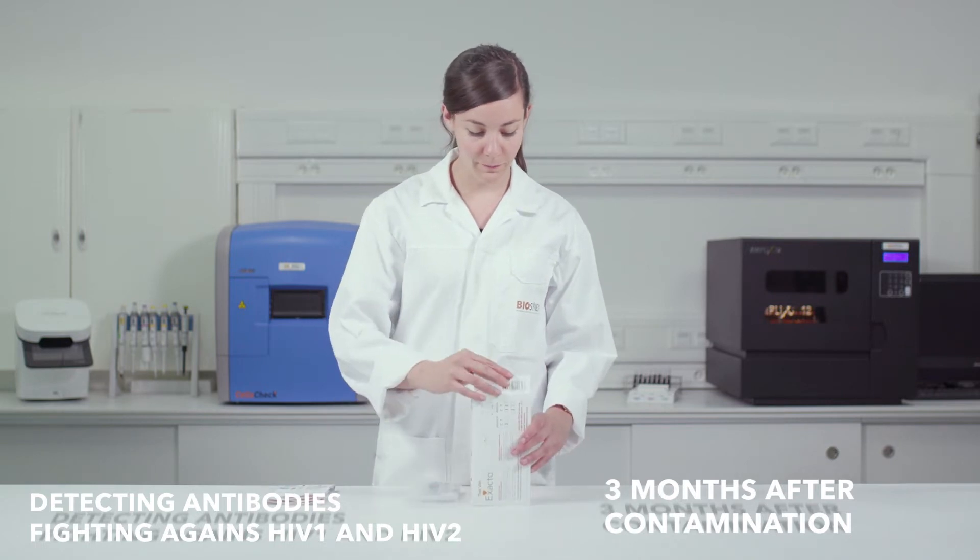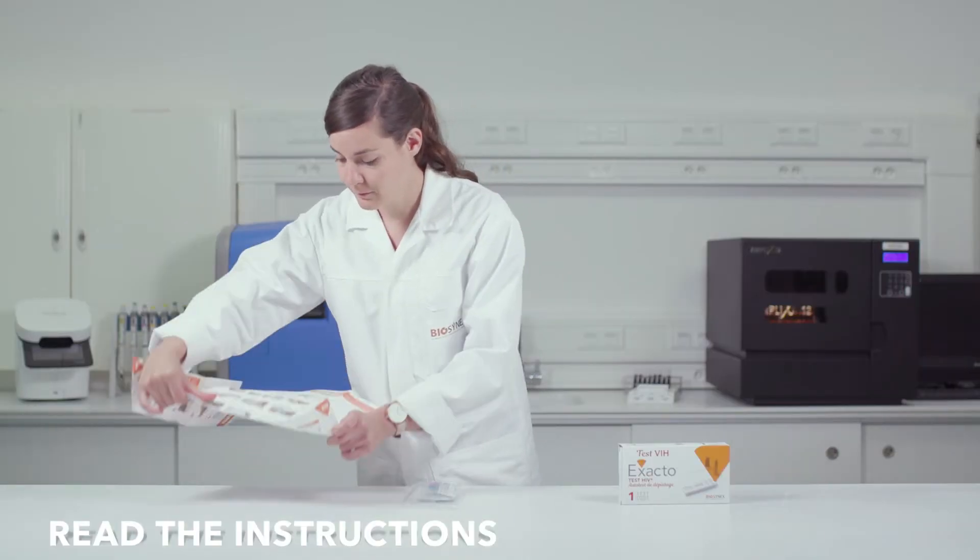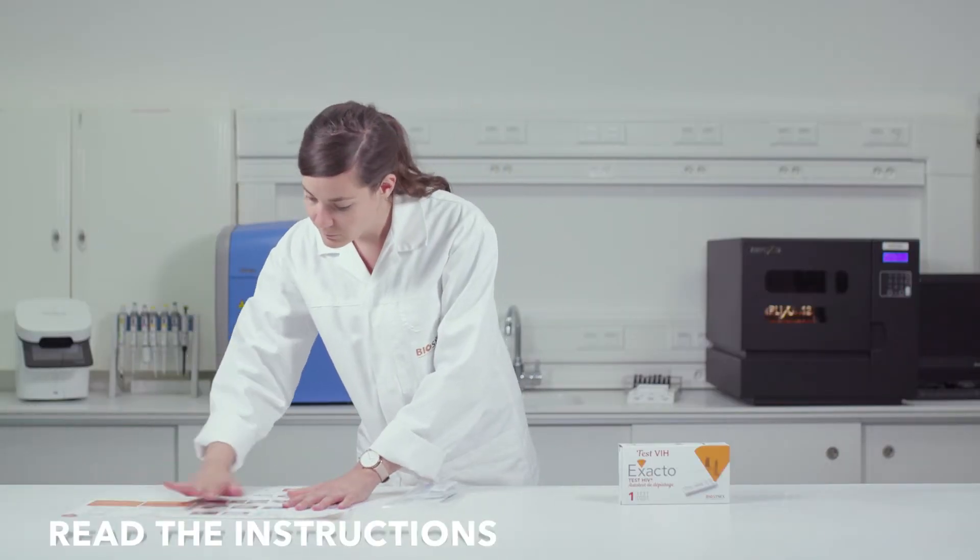To obtain reliable test results, you will need no more than 10 minutes. Before taking the test, make sure you are in a calm environment and read the instructions carefully.